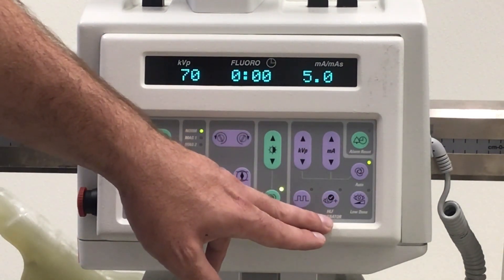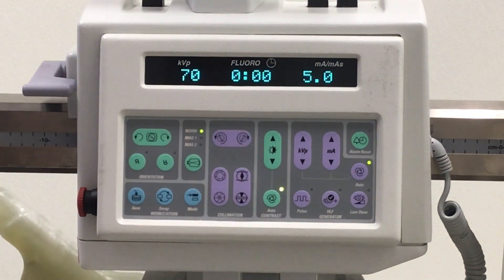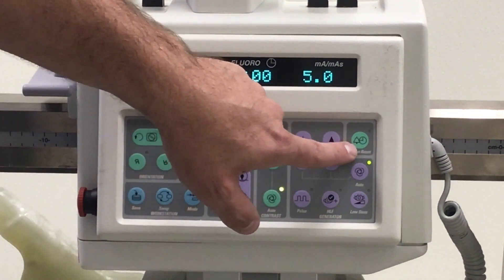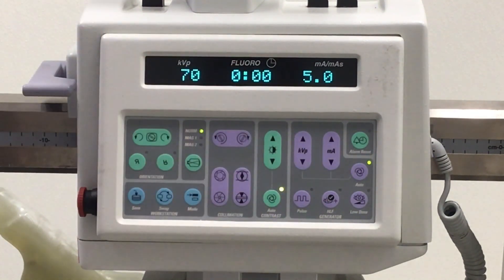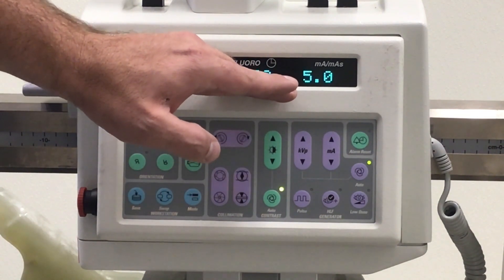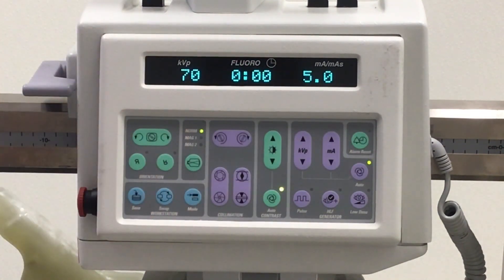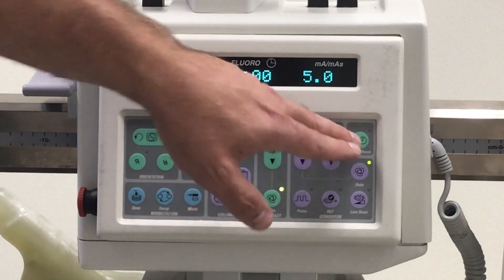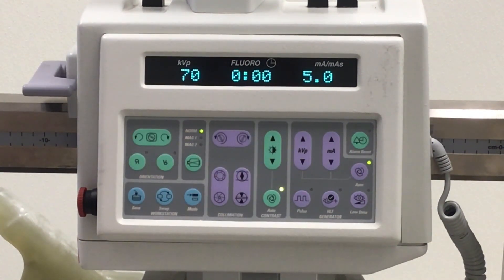This button here is our high fluoro generator button. Here you have your alarm reset. Around the five-minute mark on your fluoro timer that alarm will go off. Just tap that button and the chime will stop.